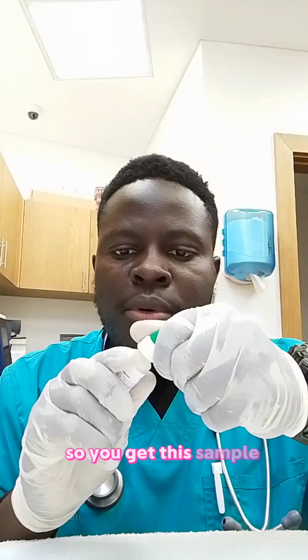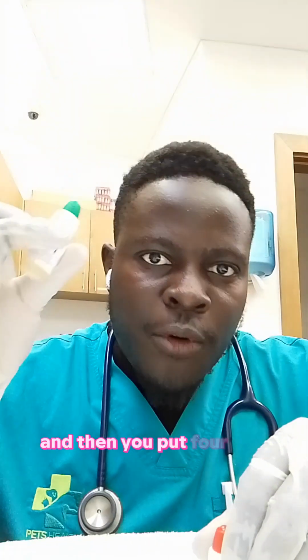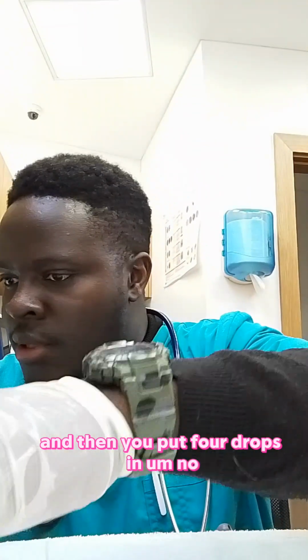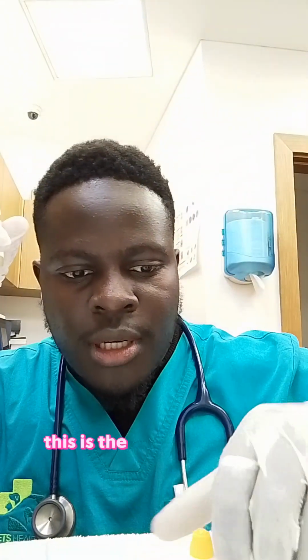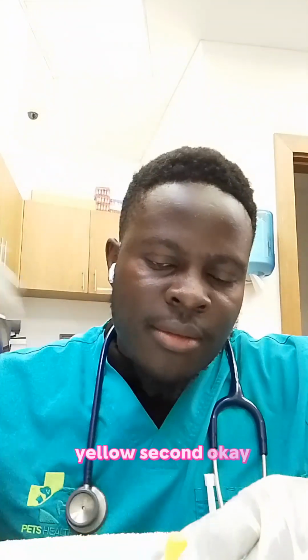you get this sample, the one we have shaken vigorously, and then you put 4 drops in the culture media. So green first, yellow second.